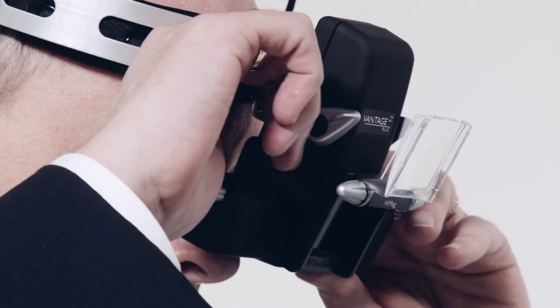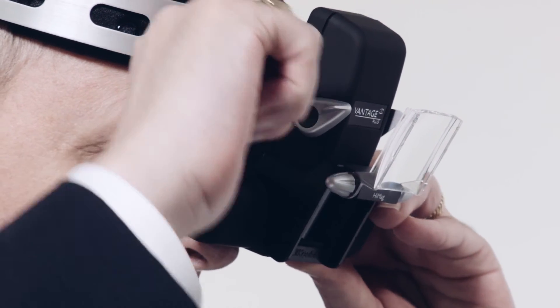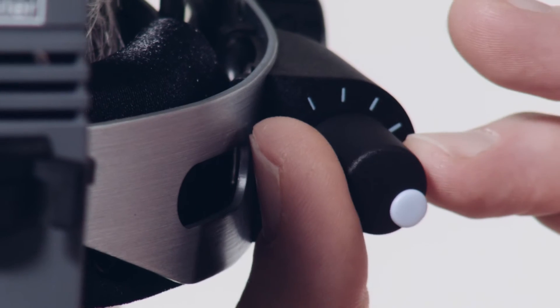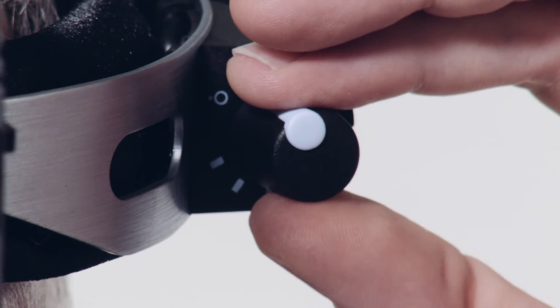The binocular block should be adjusted as close to eyes as possible using the angle knob. The head dimmer switch turns counter-clockwise to control illumination brightness.